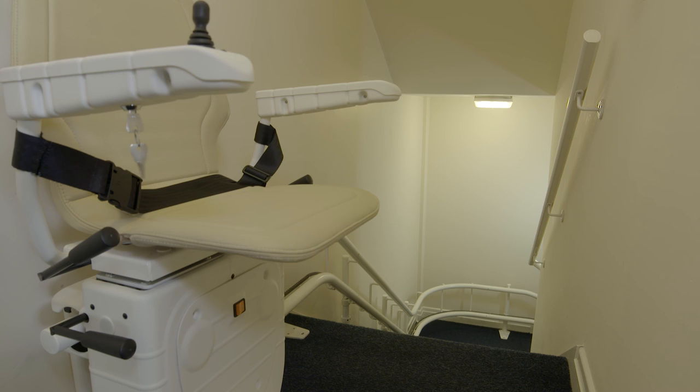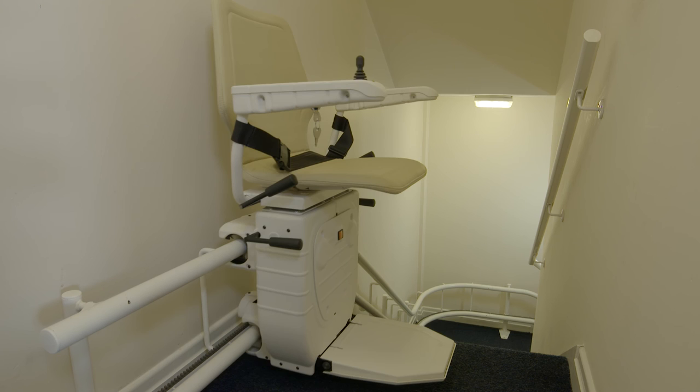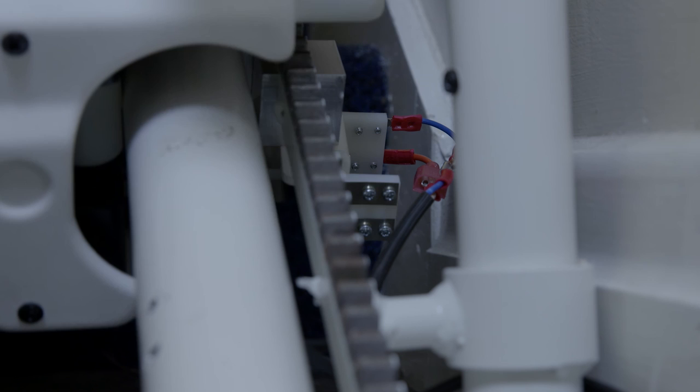Now check all features when at the top of the stairs. If everything is okay, head back down again, making sure all features at the bottom of the stairs are working correctly. Taking particular care to ensure the stairlift is charging correctly.